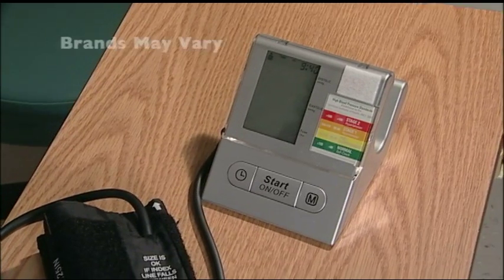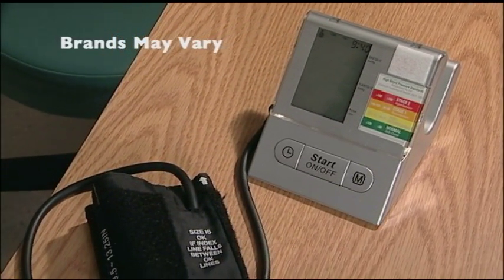Let's put on the kind of cuff that I want you to get at home — I've got one here in the office. The kind that fits on the arm. You'll find it in pretty much any drugstore and there's a bunch of different manufacturers for this kind of device. What I don't want you to do is get the kind that fits on your finger or on your wrist — they're just not as accurate.